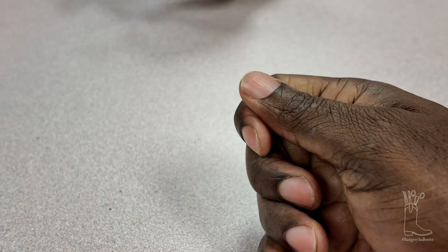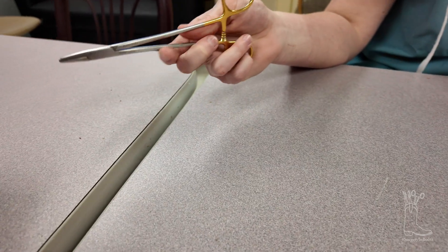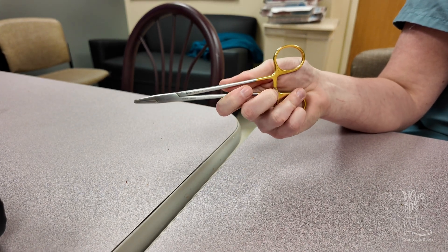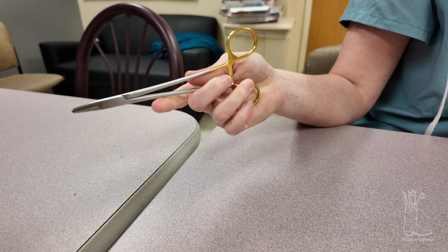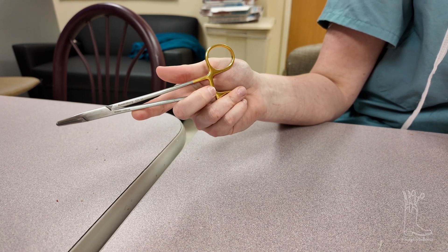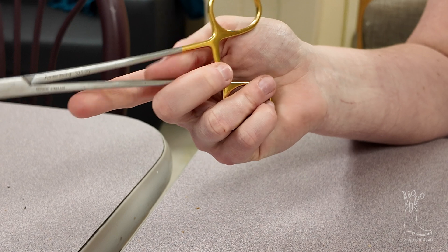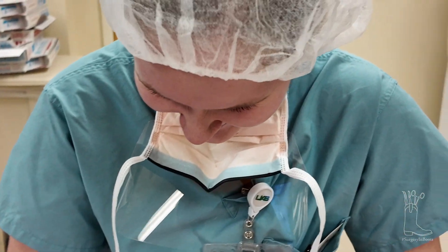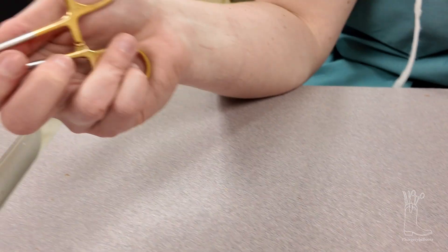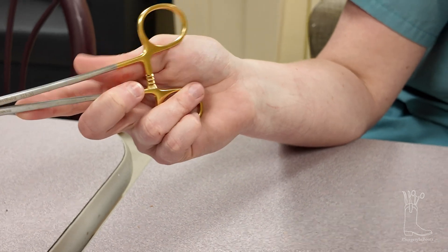All right, let's see what you got — she's not slow, she's reasonable. She's getting it except she's using all of her fingers — two, three, four, five — when she should only be using three, four, and five. Wherever you want the other finger, it can just hang out supporting. See that silly face she's making — mouth wide open. I'm going to send this to her parents so they can see their silly daughter.